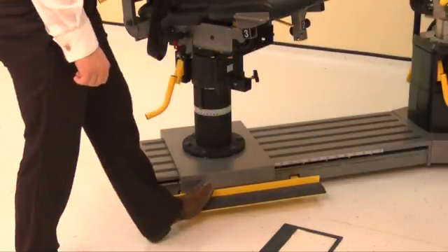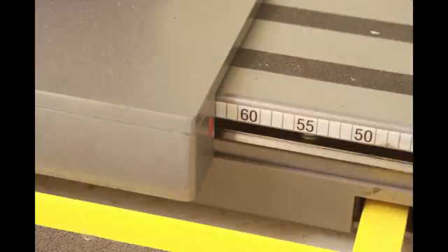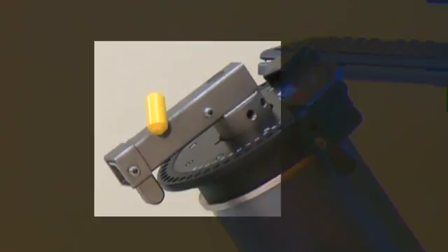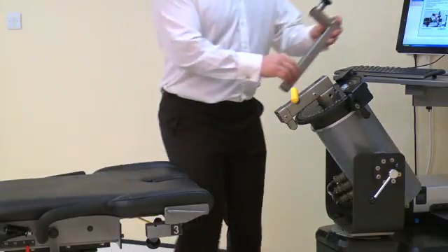Finally, position the monorail by pressing the kickboard and sliding the chair to position 63. The dyno input arm must have its short end pointing towards the 12 o'clock position for this pattern. Install the ankle adapter into the short end of the dyno input arm. Ensure the tube is facing towards the seat.